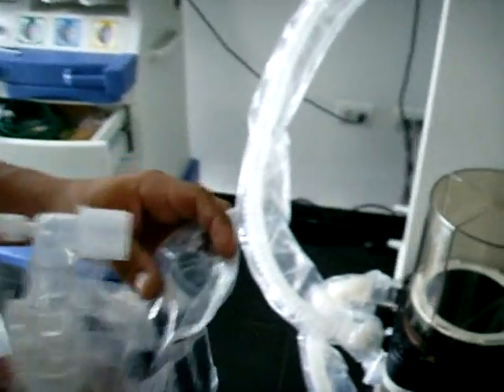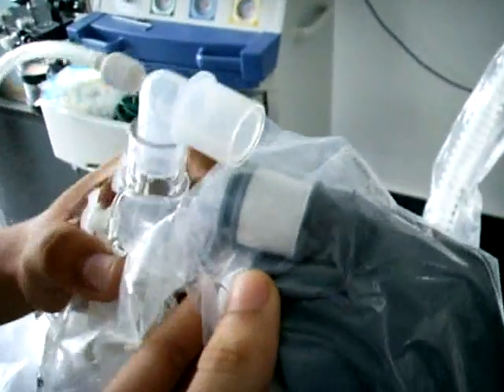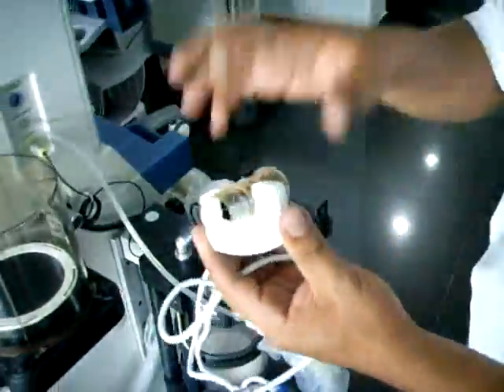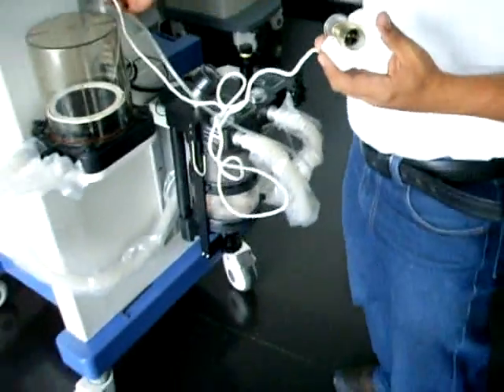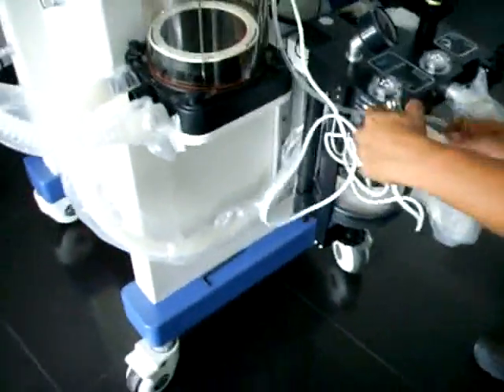Si vamos a realizar simulaciones del funcionamiento de un paciente, utilizamos el pulmón de prueba conectándolo en el acople en L. De lo contrario, si vamos a realizar una intervención, procedemos a hacer la instalación de la mascarilla. La turbina debe ser conectada al sensor de flujo, como se muestra en el video, y su extremo al conector restante de la parte lateral de la máquina, en la terminal nombrada Flow Sensor, de color azul.